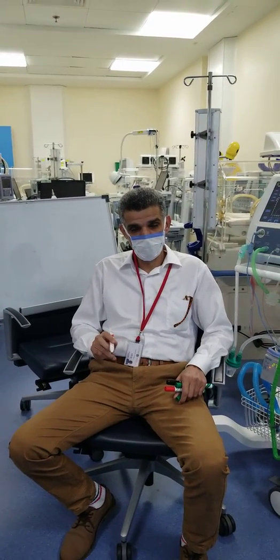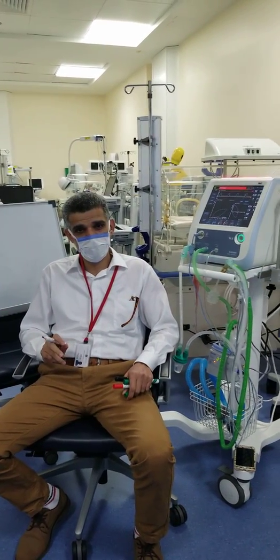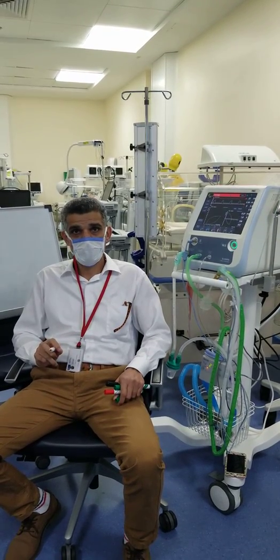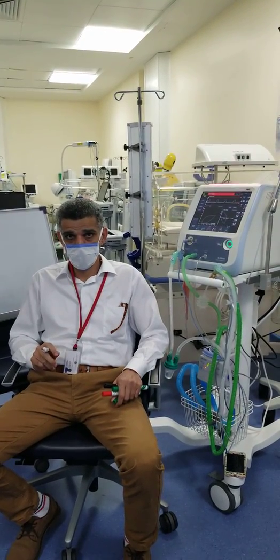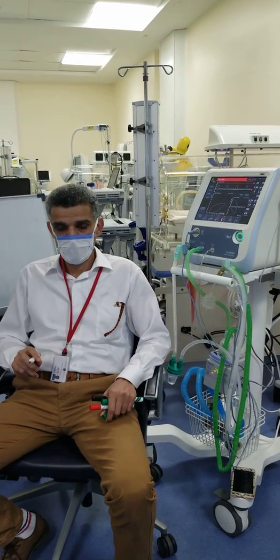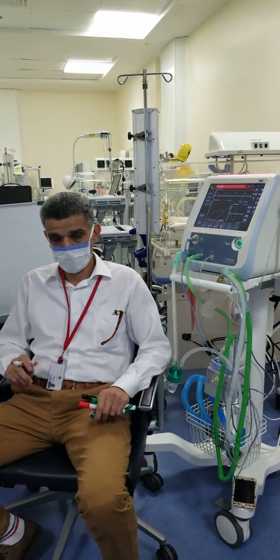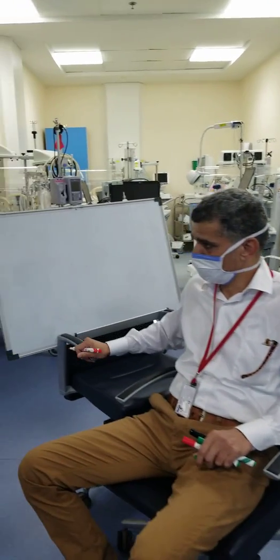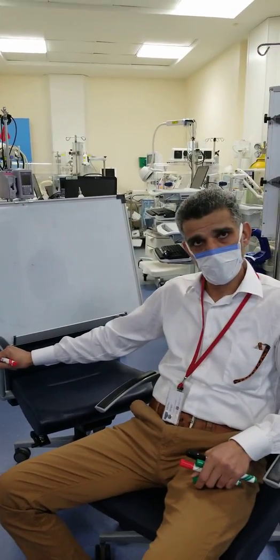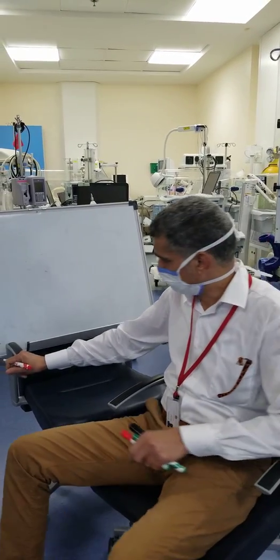I'm a consultant neonatologist and today is another episode of a series talking about neonatal ventilation. Today we'll be talking about loops, and specifically the flow-volume loop. The most important part is not to mix up between the loops of pulmonary function and loops of the ventilator, because sometimes there is a mix-up.